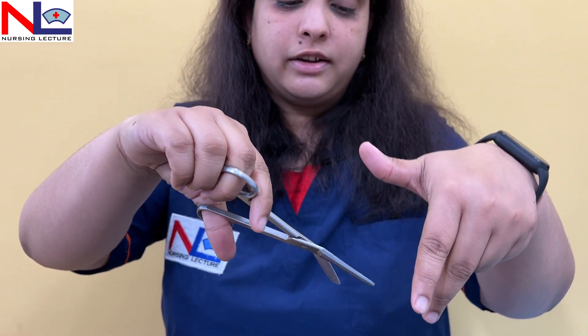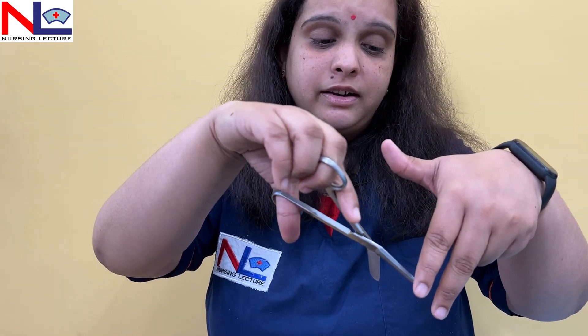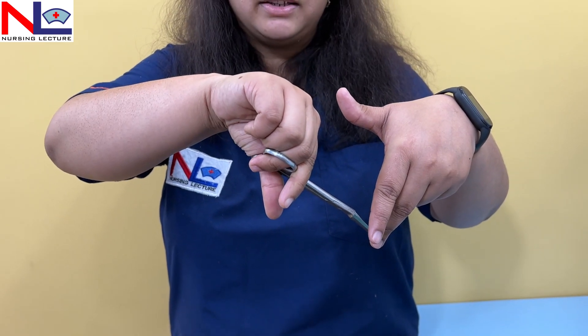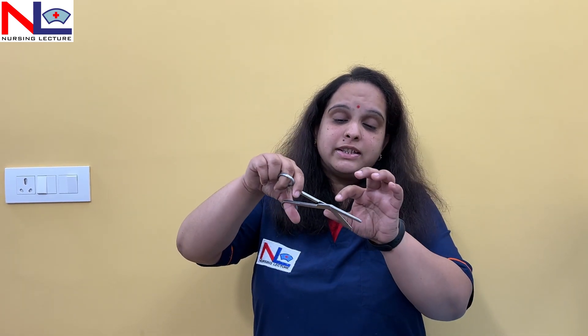When introducing into the vagina, the blunt, long blade goes inside, guided by two fingers. When contraction is at its peak and the perineum is thin and bulging, we incise. The angled design is advantageous because a straight scissors may extend the incision in the midline, but we want the incision to run laterally — mediolateral is the most common type. The angle gives approximately 60 degrees away from the midline, ensuring the incision goes laterally. That is why we use this specially designed laterally angled episiotomy scissors.